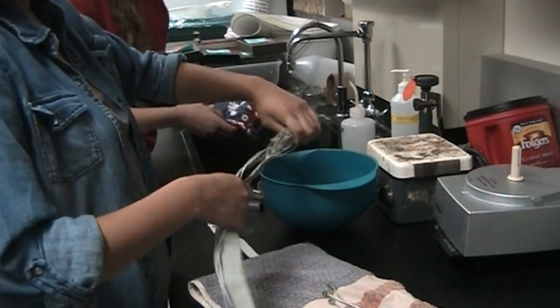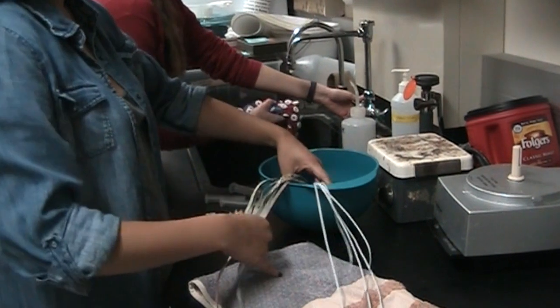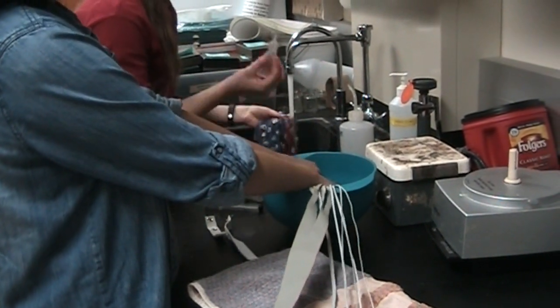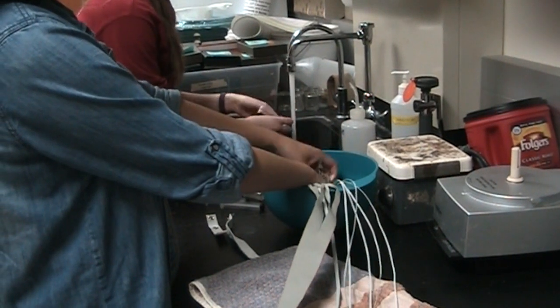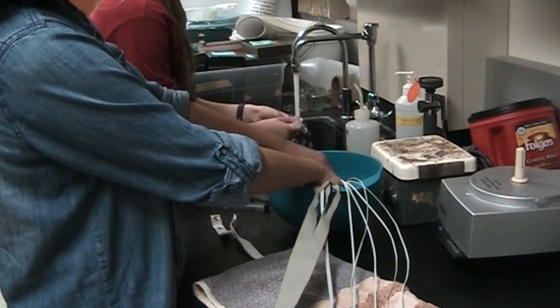So then the electrodes just sit in the water and kind of squish them around, and the cap will run it under water, and then I use a syringe and go into each support that we filled with gel and make sure that all of the gel is dislodged.